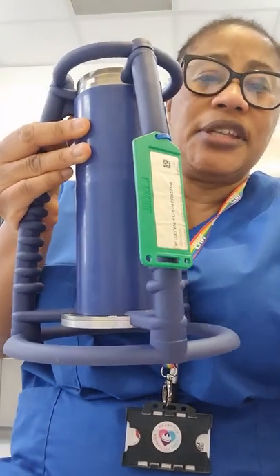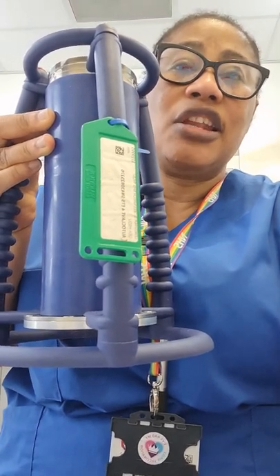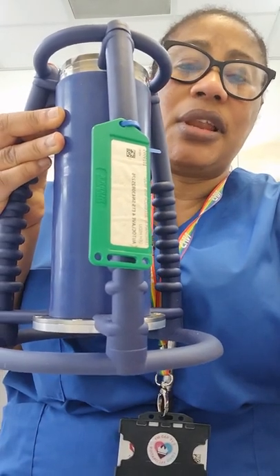In our site we use the ETS system, which is compliant with BS EN 11140-3. I will be showing you in another video how to demonstrate the ETS, but I would like to show you this — this is the type of ETS that we normally use for our Bowie-Dick test. This is an electronic test system for the sterilizers that we use.